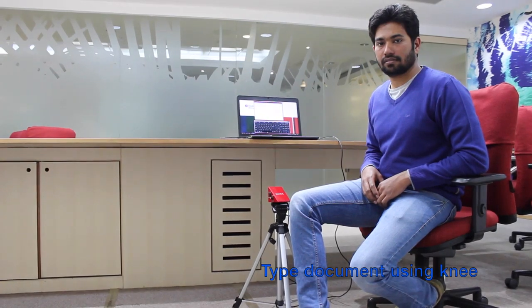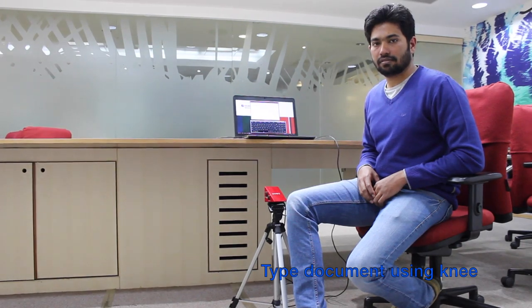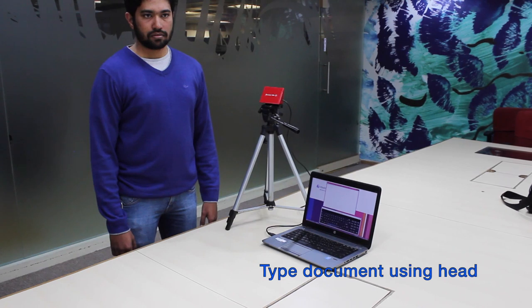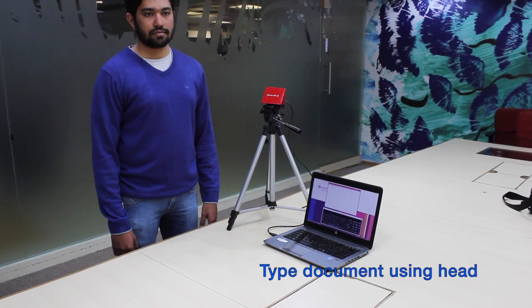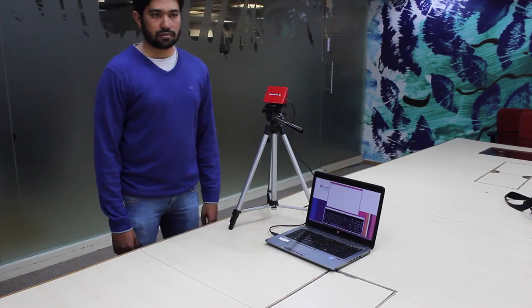If a user has involuntary movements with his hands and head, he can type documents using his knees. For this, Aditi should be mounted on a fixture near his knees. If a user has involuntary movements with his hands, he can use his head to type. For this, Aditi should be mounted on a fixture near his head.